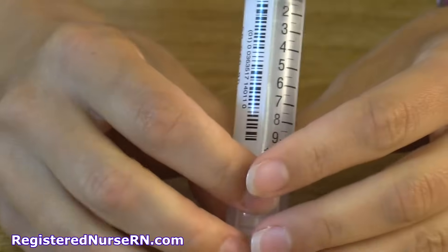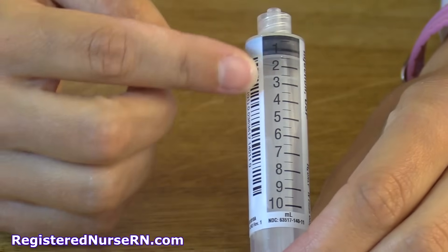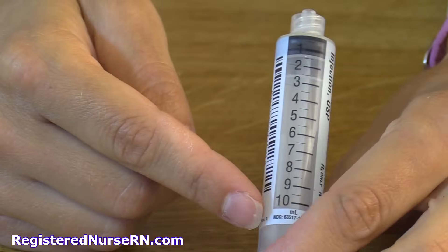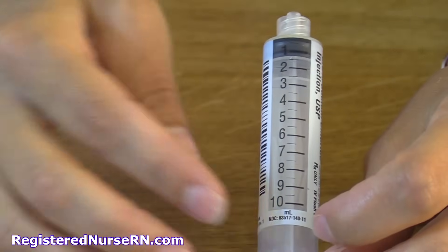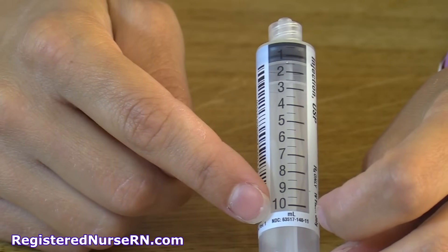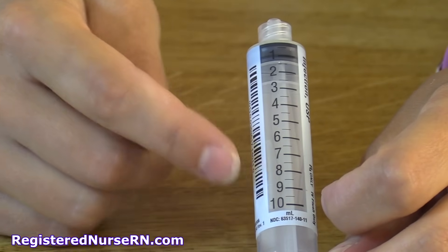The other important part is the barrel of the syringe. The barrel has a scale on it, and this scale tells us how much medication we are going to give based on whatever the doctor ordered. Every syringe is different in how it measures, which is why you should get familiar with how much your syringe holds — we'll go over each individual syringe in depth.